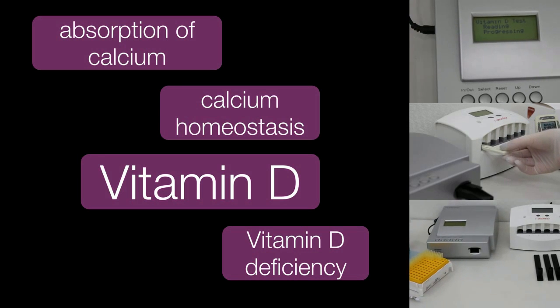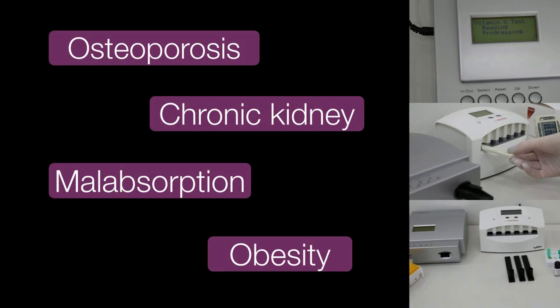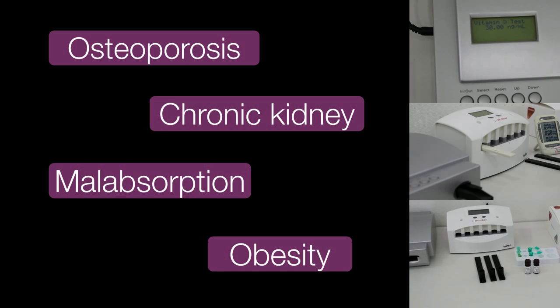Patients with osteoporosis, malabsorption, chronic kidney disease, obesity, and some other infections may be high risk and thus have greater indication for this test.